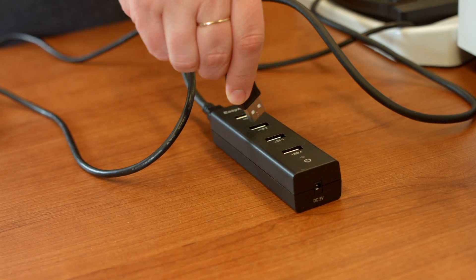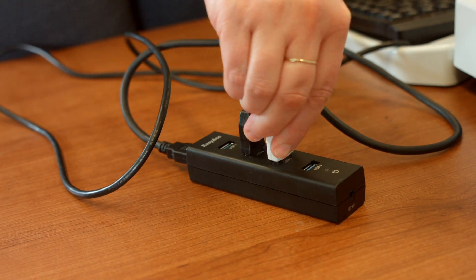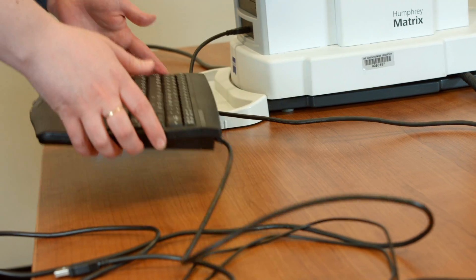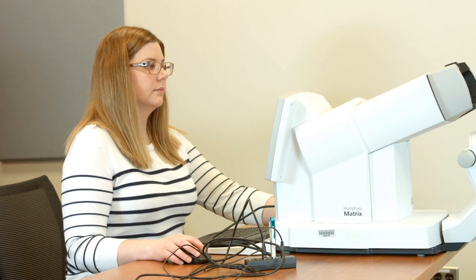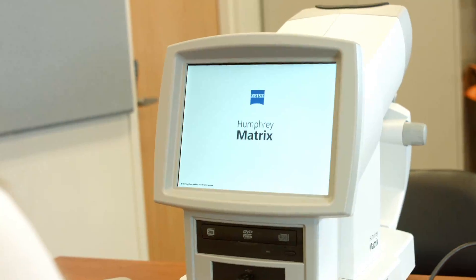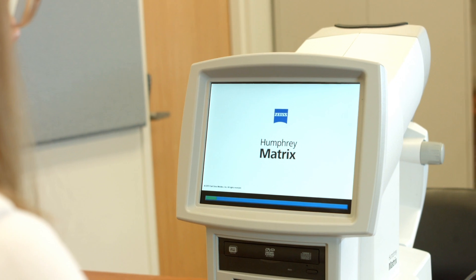Now insert the keyboard and mouse into the USB hub next to the network port. Before plugging the unit into an appropriate power outlet, make sure that the power switch located on the left operator side of the instrument is in the zero or off position. The system will boot up in about two minutes. A status bar will indicate the progress.